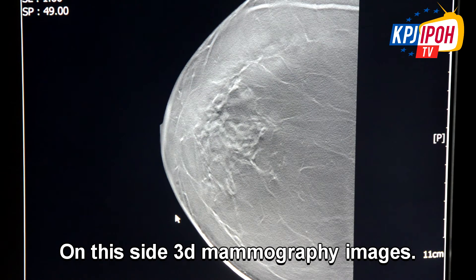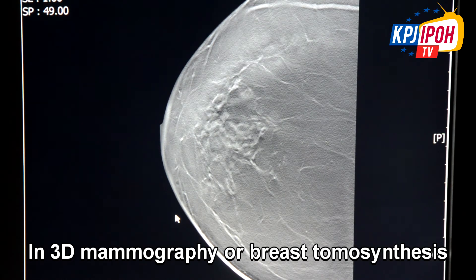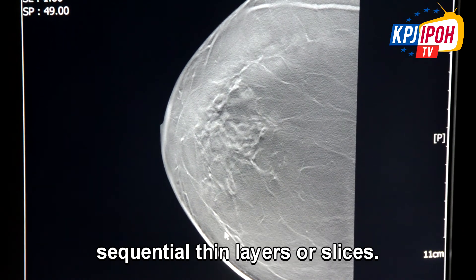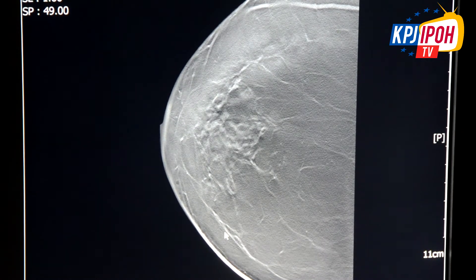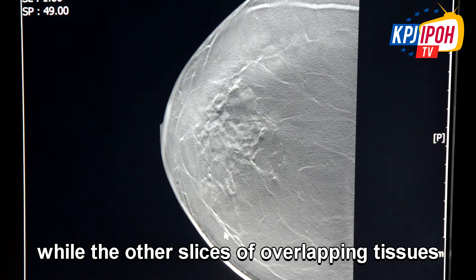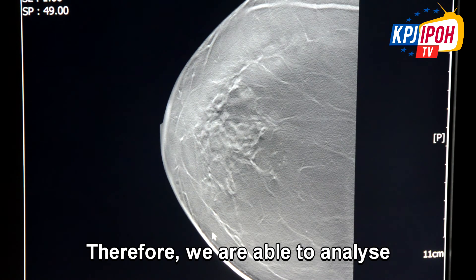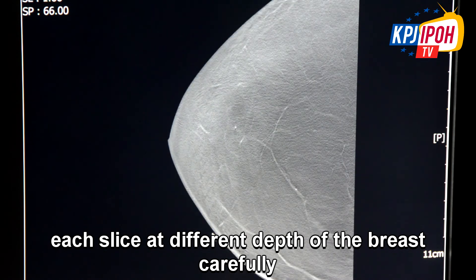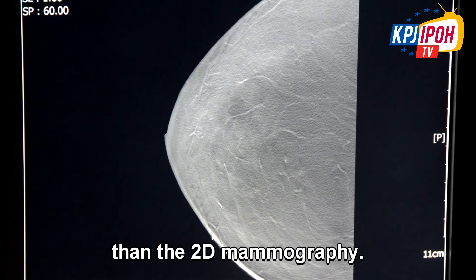On this side, 3D mammography images. In 3D mammography or breast tomosynthesis, the one single composite image of the breast is now divided into multiple sequential thin layers or slices. As we scroll through these images, at any one time one slice comes into focus while the other slices or overlapping tissues become out of focus or are blurred out. Therefore we are able to analyze each slice at different depths of the breast carefully, allowing us access to much more detail than 2D mammography.